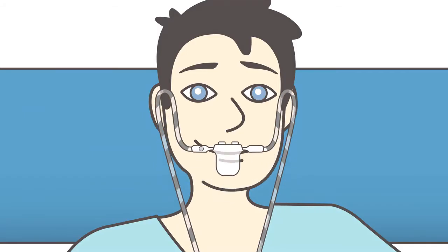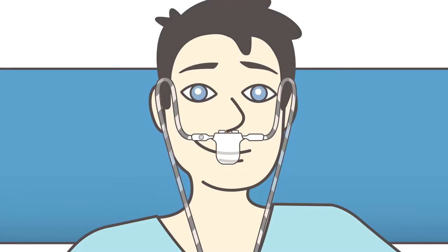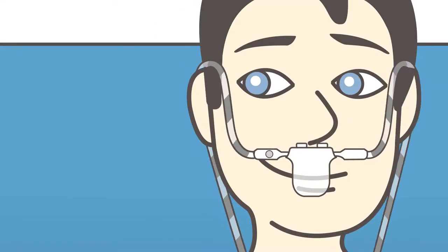Now place the breath sensor with the two round humps under your nose. The sensor is positioned correctly when the single large hole is on the right side of your face and the tubing is placed behind each ear.